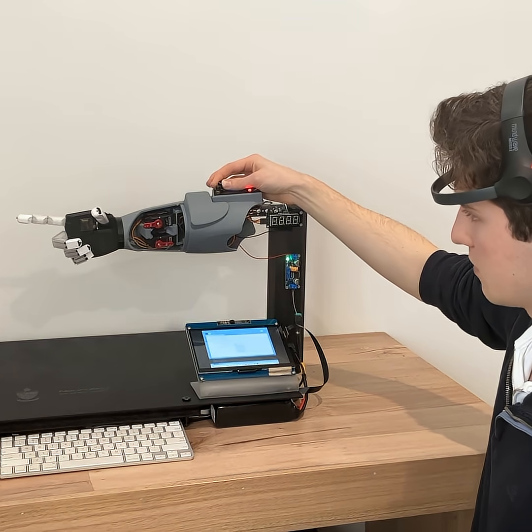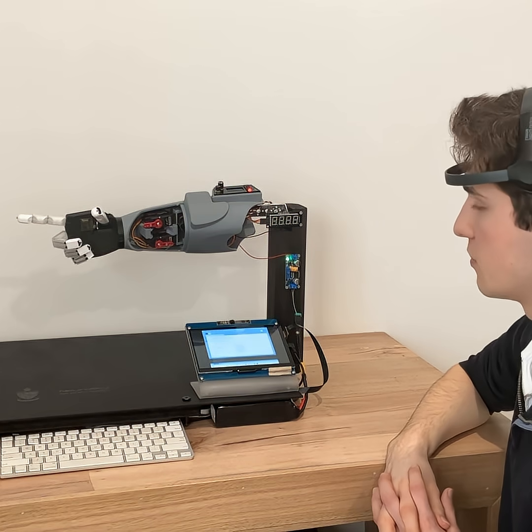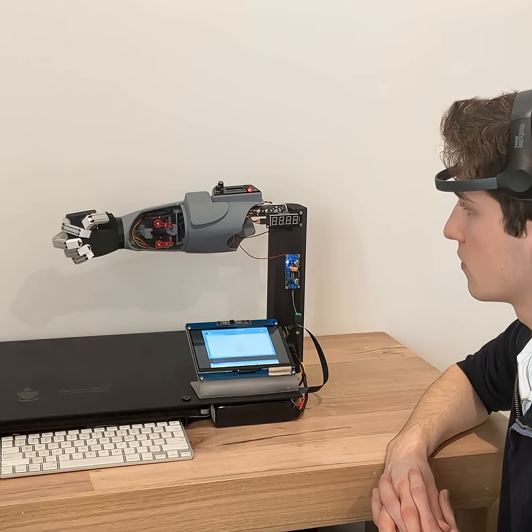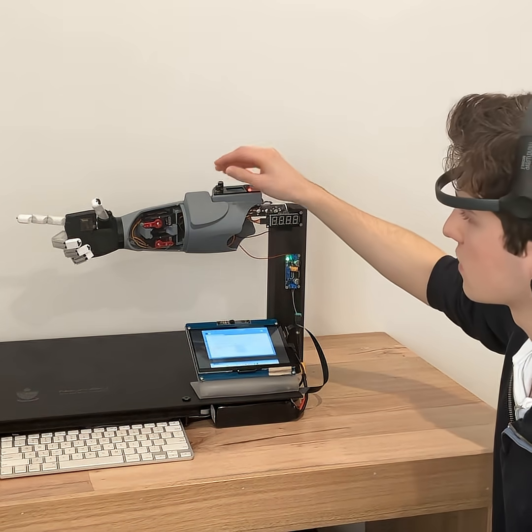Allowing you for fine dexterity. So I can place it in a position like that and with your mind you can then make a pinching action. I'll try to show you that now. I'll do that again. So that works quite well.